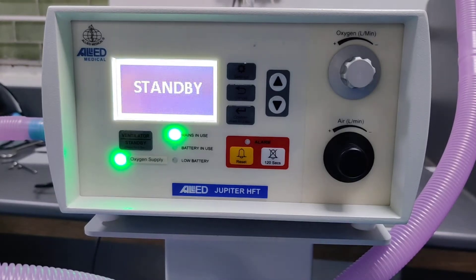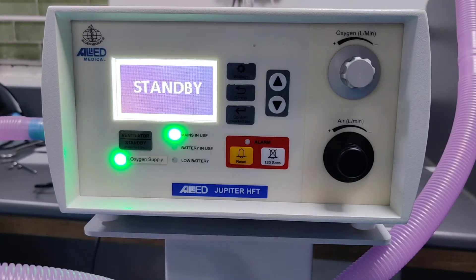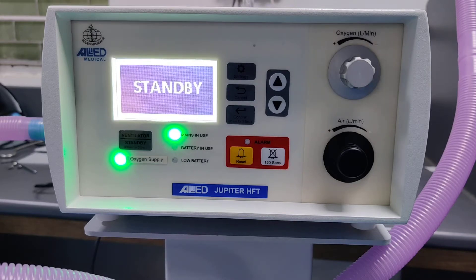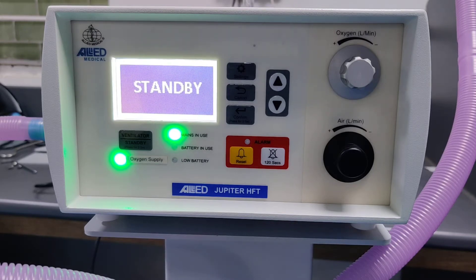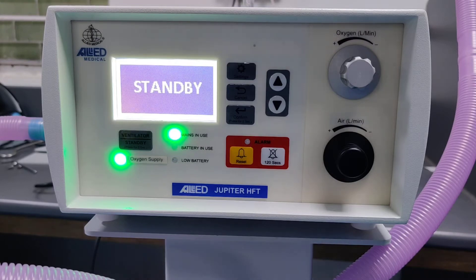This is the Allied Jupiter high flow therapy machine. This machine runs with a single limb circuit, and on the end of the single limb circuit we connect a nasal cannula.